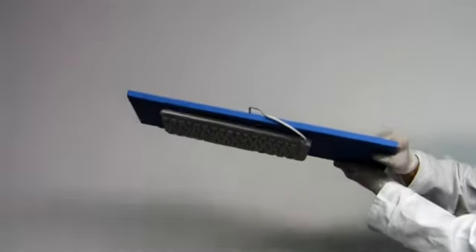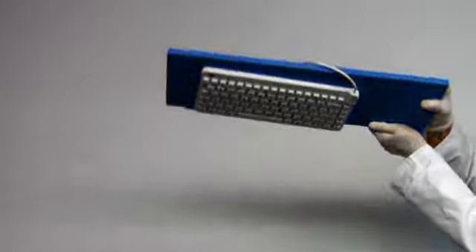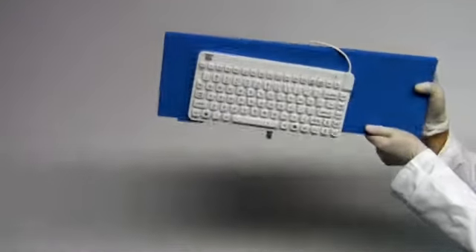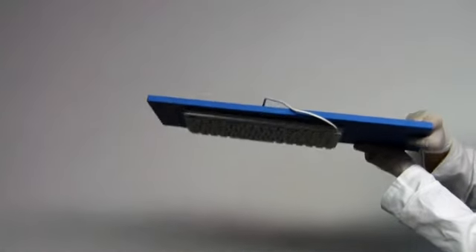Optional magnets under the keyboard skin is a hygienic solution for attaching all man and machine medical grade keyboards. These magnets firmly hold the keyboard at any angle, even upside down.